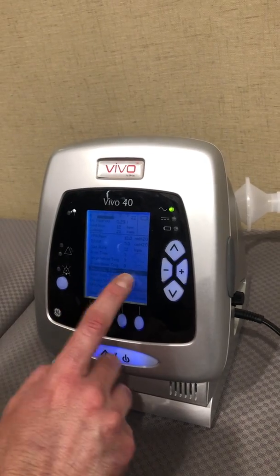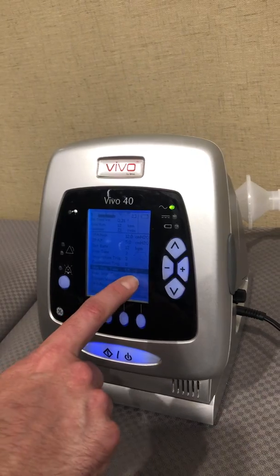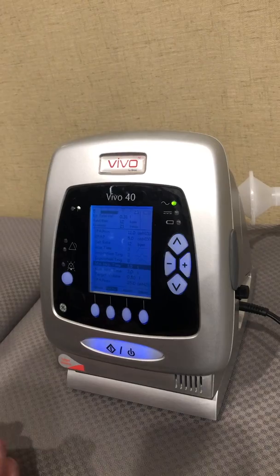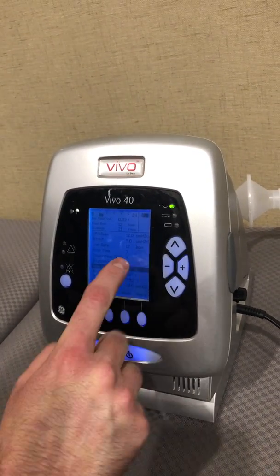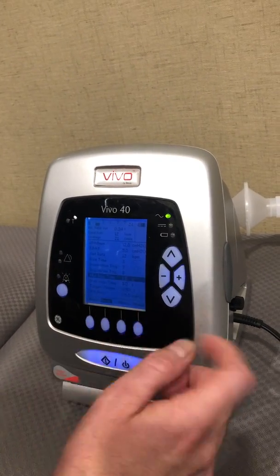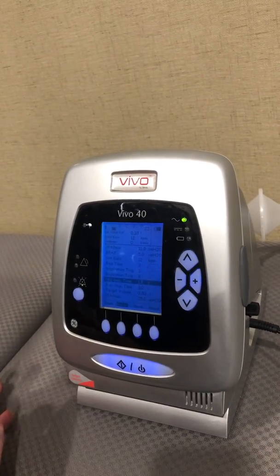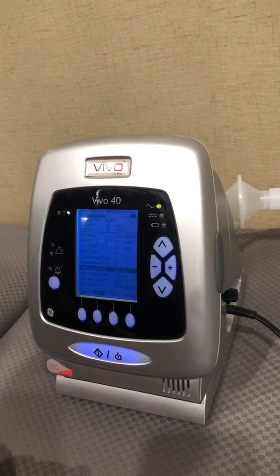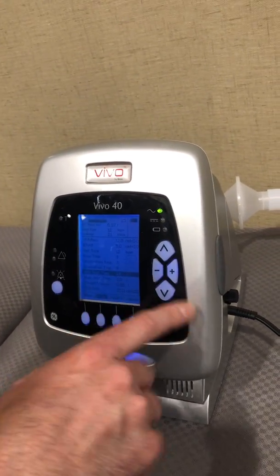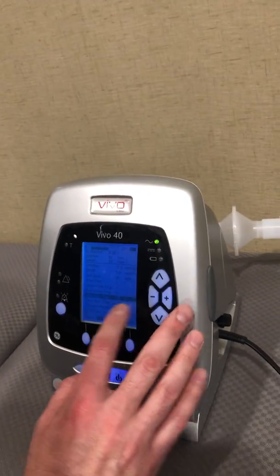You can also set a minimum and maximum inspiratory time. This is set at 1.5 to 3. If you have a patient with end-stage COPD, for example, you'll want to make sure your I-times are lower, because these patients tend to have a very high I-to-E ratio — sometimes 1:4 or 1:5. They have a long exhalation, so you need to make sure your I-time is small for patients with long exhalations like end-stage COPD patients. I'm going to leave this on 1.5 to 3.